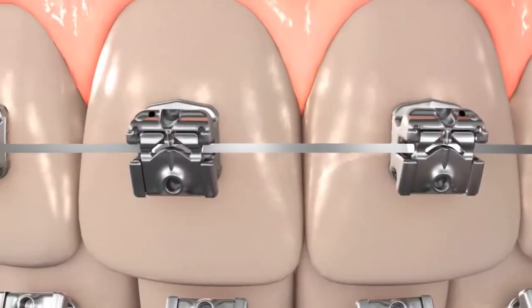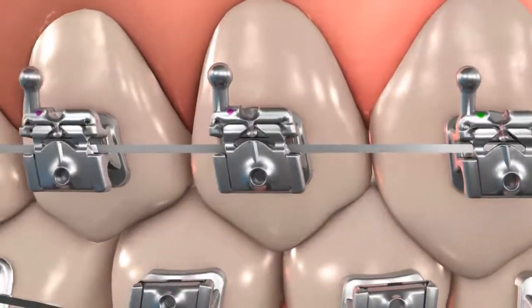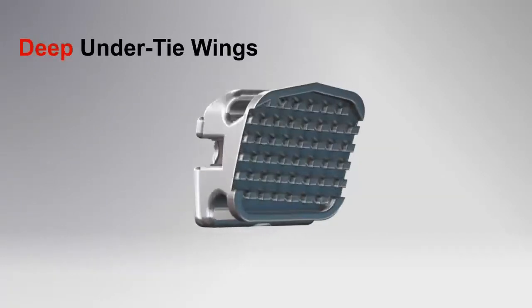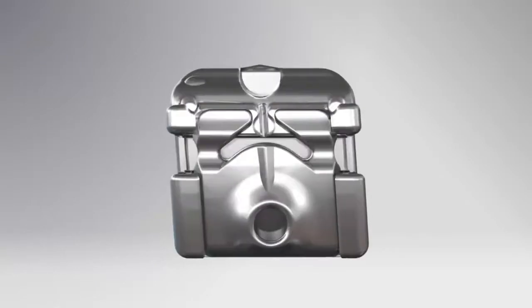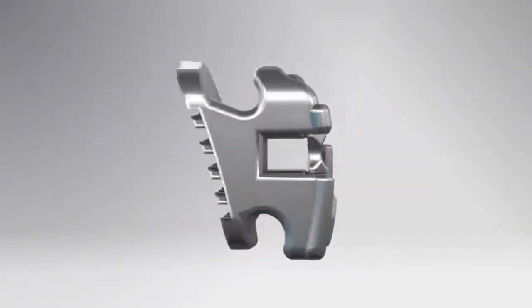By providing outstanding rotational and torque control, you can improve your final tooth positioning and have great case finishing. The Carrier SLX bracket has deep under-tie wings for easy, secure chain and ligature use. In addition, there is no need to ligate or tie the chain under the wire.